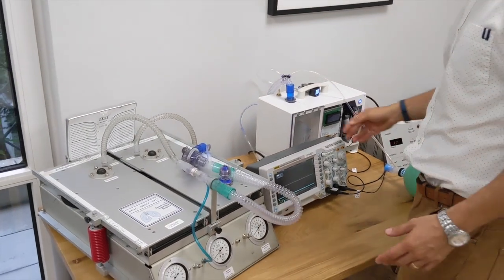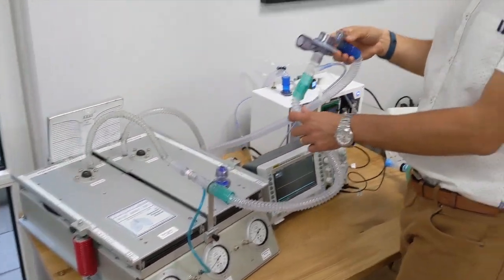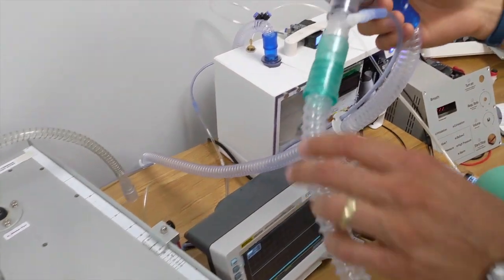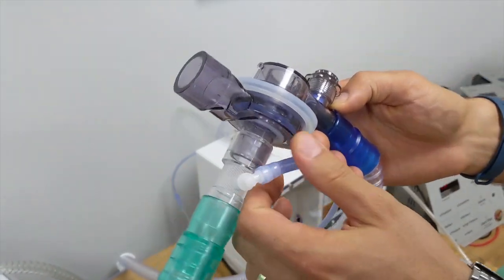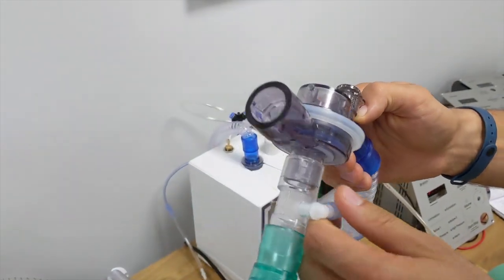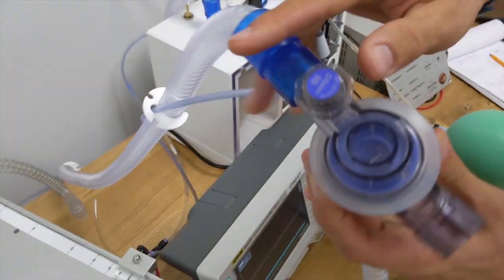This is the setup that we have used previously. And here we have the connection to the lung. Here is the tube for the patient monitoring. Output from the valve, input from the valve.